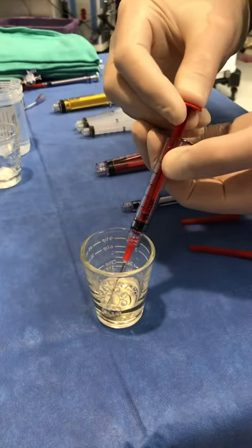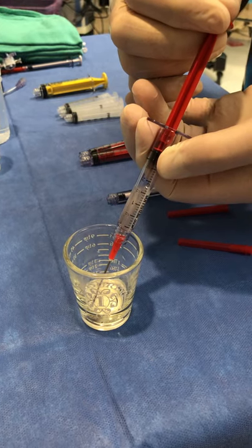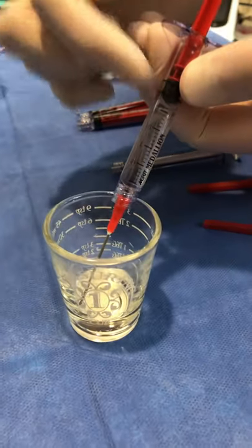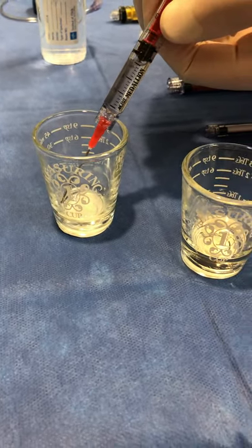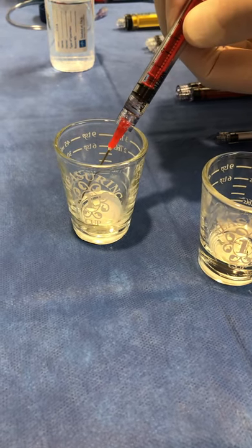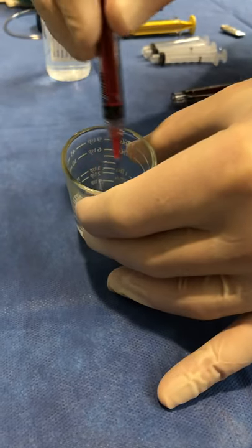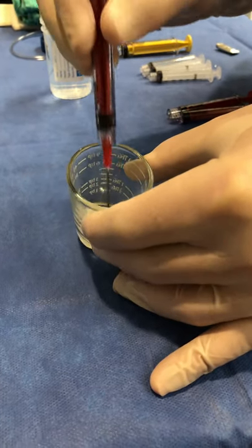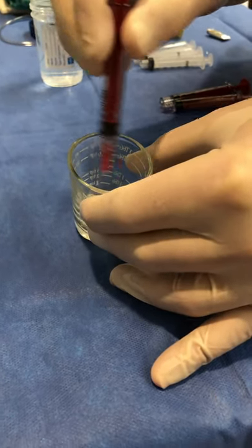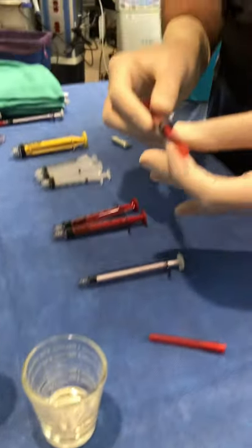Alright, this is going to be a little more difficult. Say we go two to one — so this is two cc's of oil to one cc of glue. It goes in trying not to make bubbles. It's very thick, it's viscous. You would then use your needle to stir it. This is water by the way — that's why it's looking like that. It's not actually glue; it's just D5 in there. Didn't want to waste a thousand dollars.